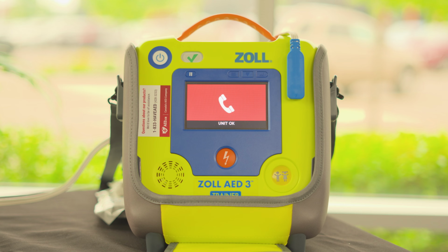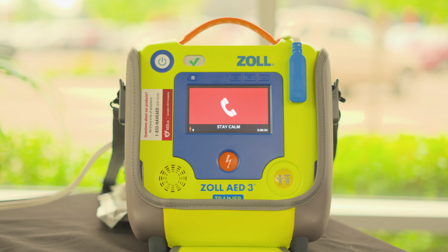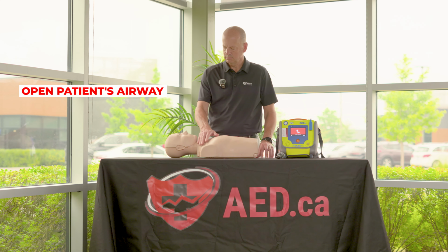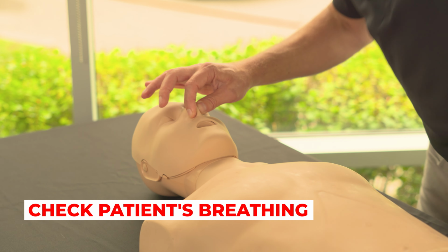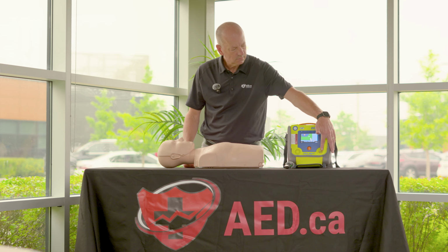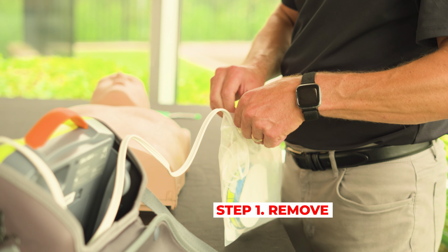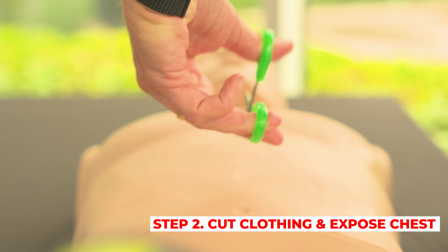Unit OK. Automatic defibrillator. Stay calm. Check responsiveness. Call for help. Open airway. Check breathing. Adult patient selected. If patient is a child, press Child button. Remove pad package. Cut or tear clothing to expose patient's bare chest.